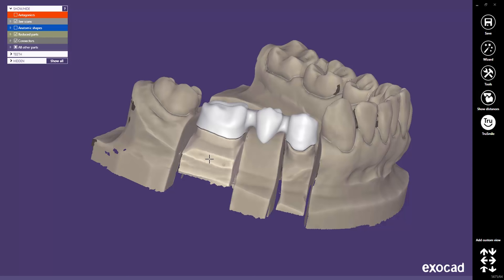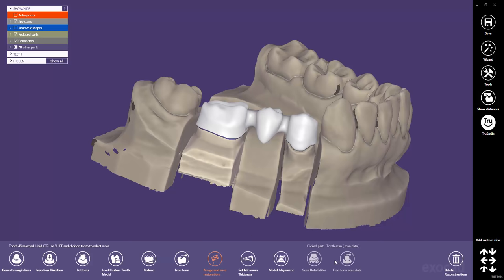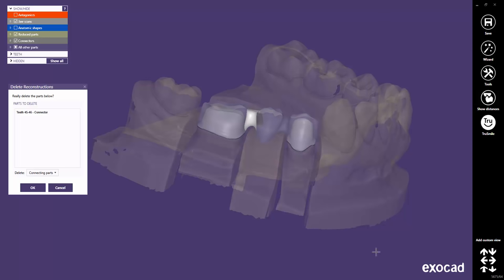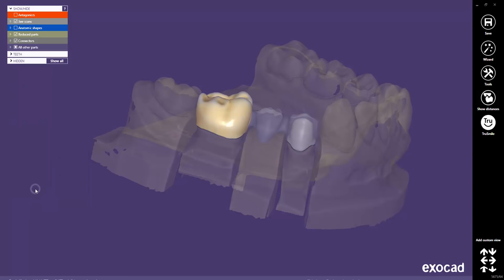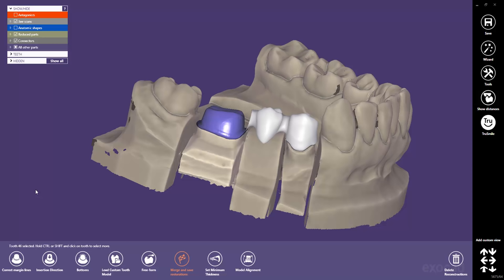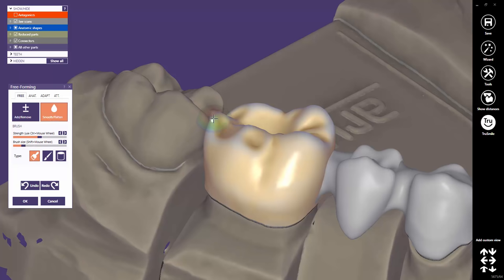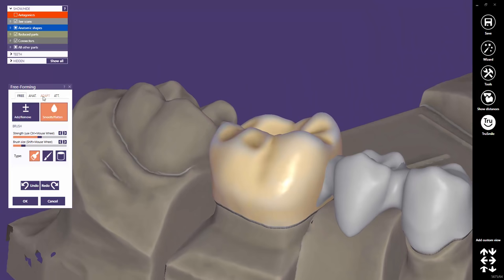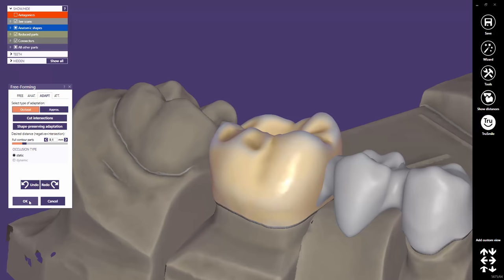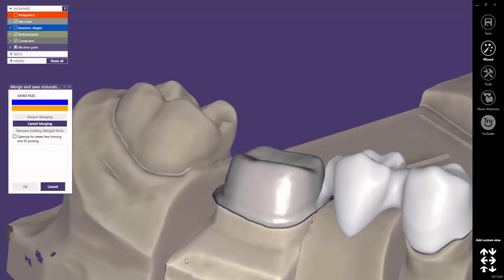To resume this tooth's job at that step, we select this tooth and click on Delete Reconstructions again. But now we choose Only Reduced in the drop-down menu to delete the reduced tooth. Now we could click on Merge and Save Restorations to export the restoration with the anatomical tooth we designed in the initial job before the shrinking step. But perhaps we might do some fine tweaking for that tooth with the Free Forming feature first. This way, only this tooth can now be free-formed. The rest of the restoration will keep the initial design. Click OK to finish the free-forming operation. Click on Merge and Save Restorations, or on the Wizard button to save and export the new design.